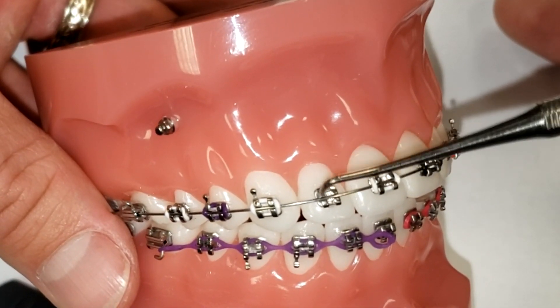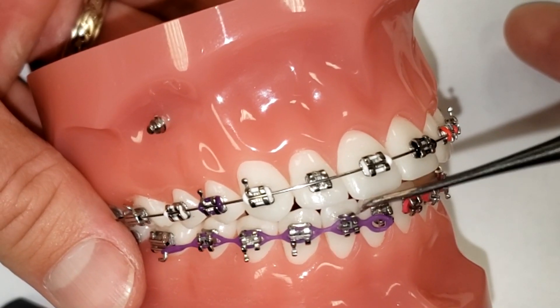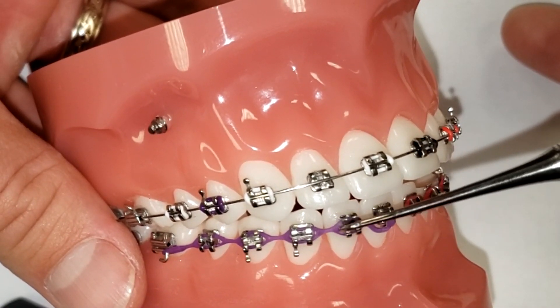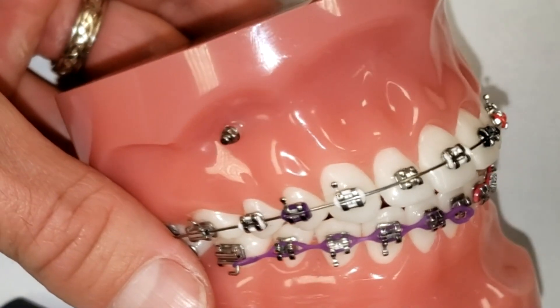As far as the single color up there on the top, you've got a little bit more time, but at the end of the day, contact your orthodontist — they'll be able to tell you. Another thing that you might see happen down here with these power chains is if they get cut or if they rip or something.